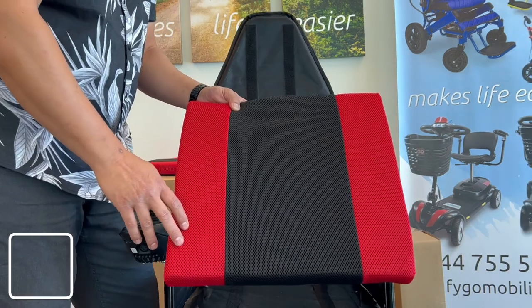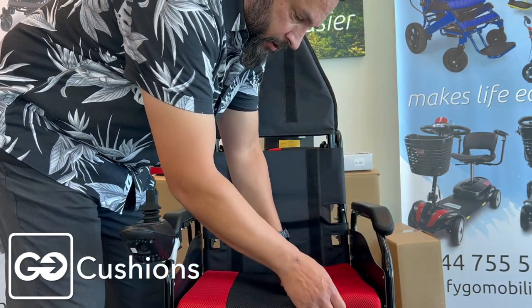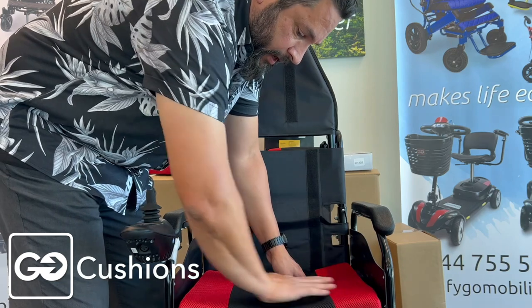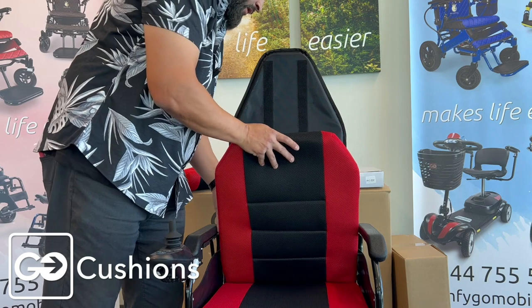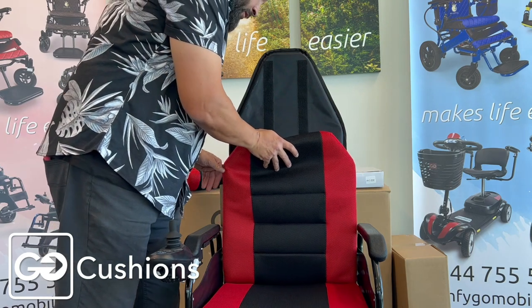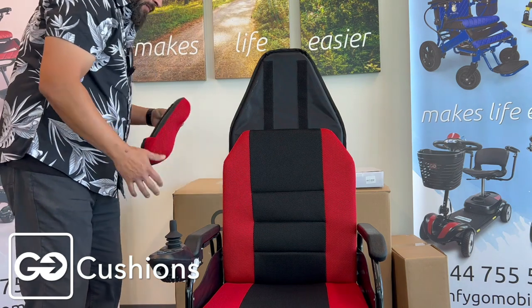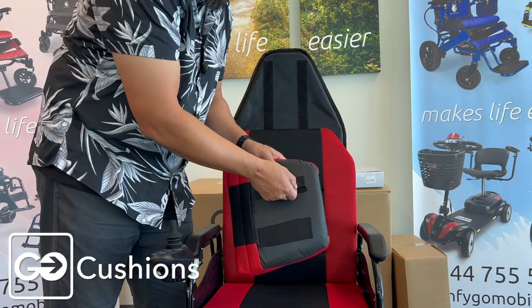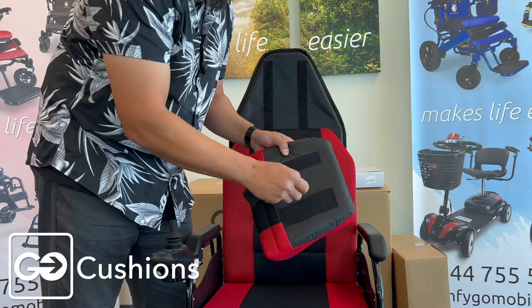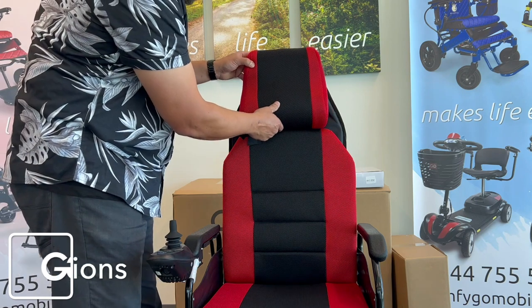Our chair is starting to come together, and here is our bottom cushion. I'm going to assemble this and put it in here — you do have Velcro that should stick on there very nicely. Here's our backrest; I'm going to put that in, line up the Velcro, and push that on nice and centered. Now here's an important step: you're going to notice we have protective layers on the Velcro of your headrest, so go ahead and peel those off — otherwise your headrest won't stick.